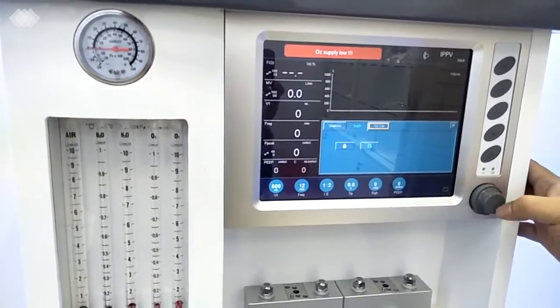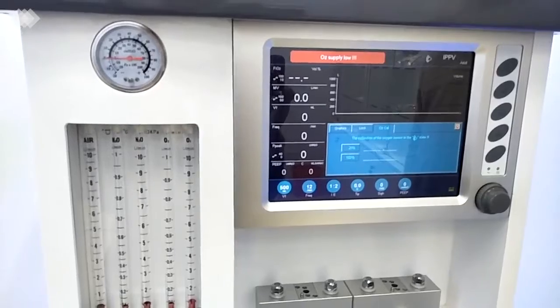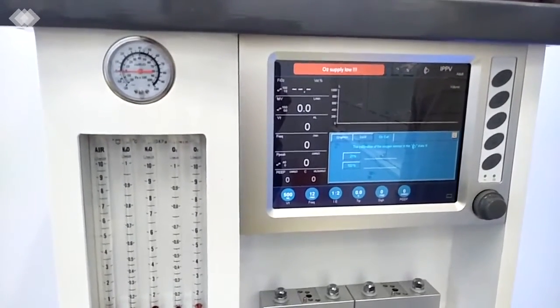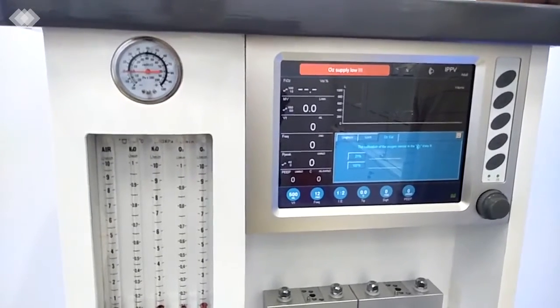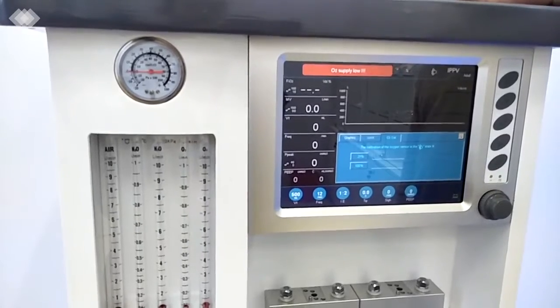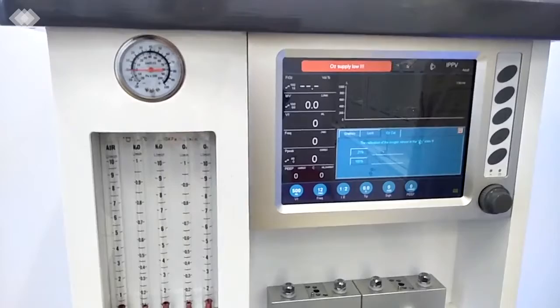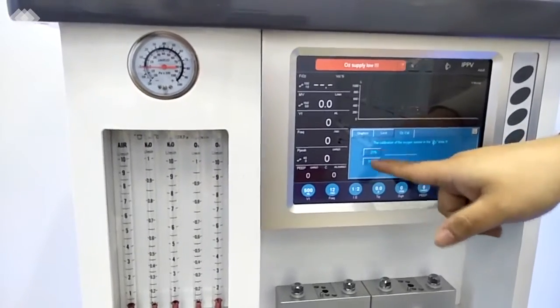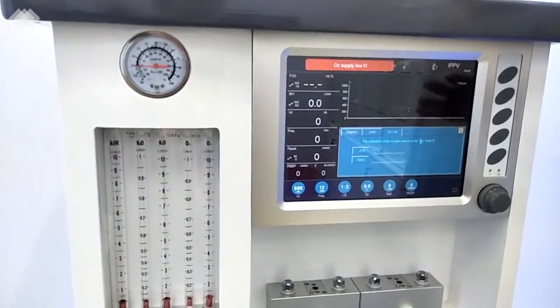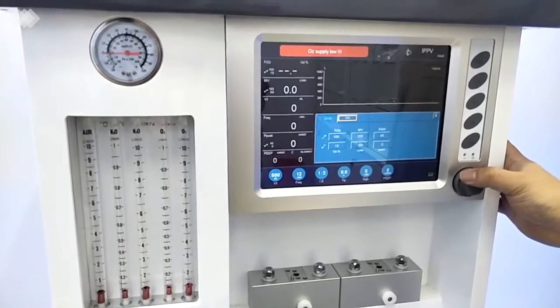And the third one here is for the oxygen calibration. For all our machines, we have the oxygen calibration. Before the machine is shipped, we do the calibration in China, in our factory. But in different countries, the oxygen concentration in the atmosphere is actually different. So that's why, as I mentioned, before you use the machine, you only need to do it one time at 21% and 100%. Also, in the installation video, we have the steps to teach you how to do it. Very easy.